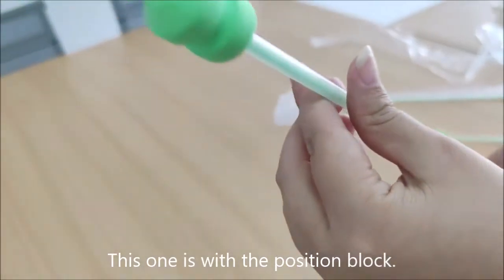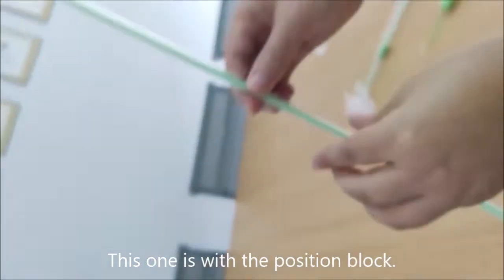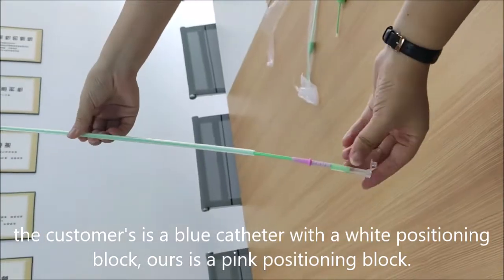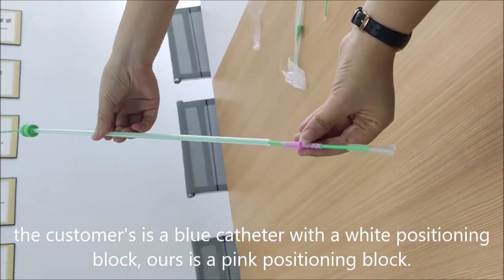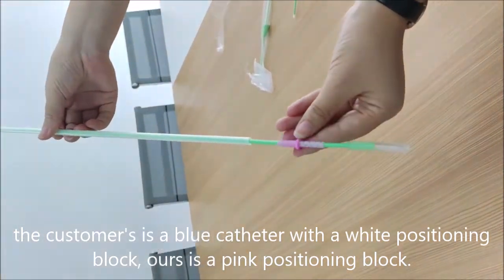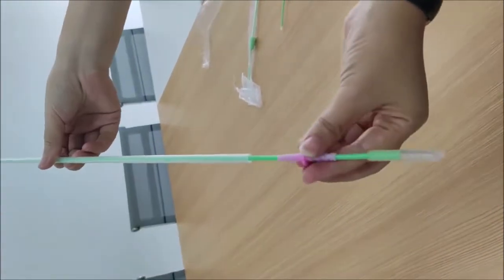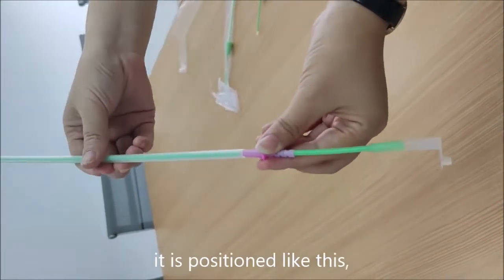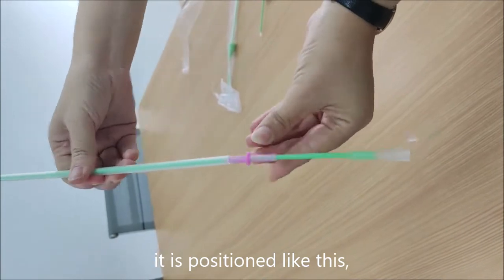This one is with the position block. The customer's is a blue catheter with a white positioning block, ours is a pink positioning block. It is positioned like this.